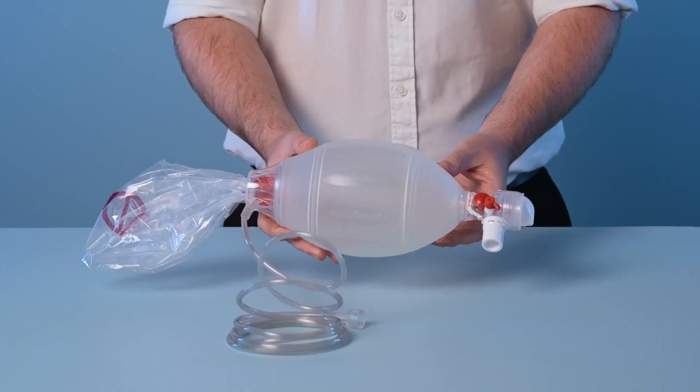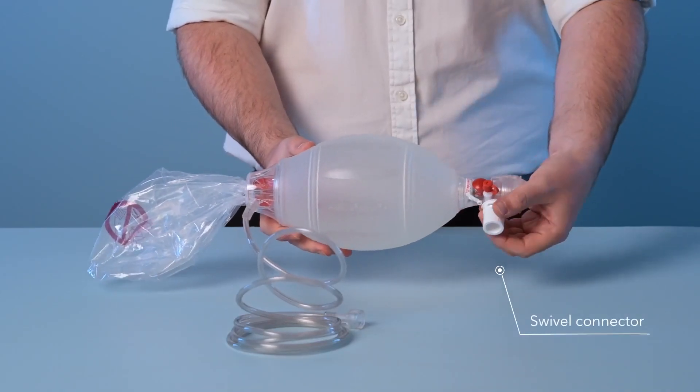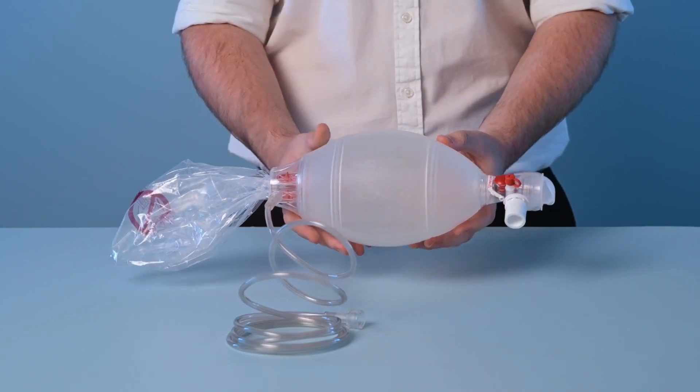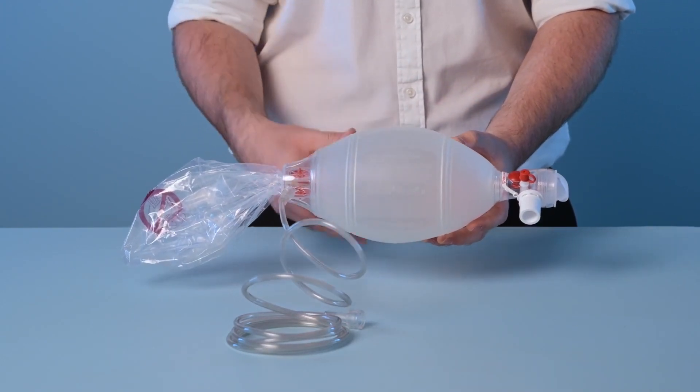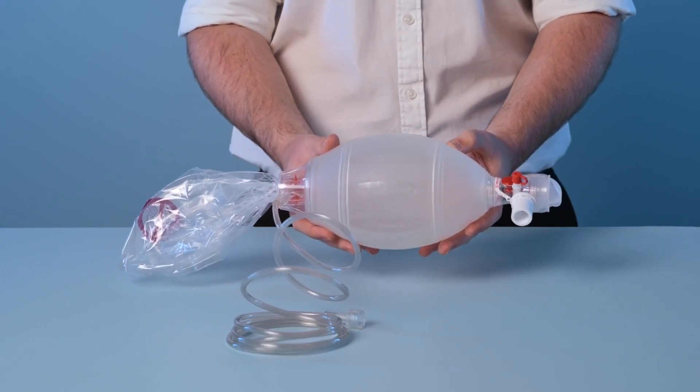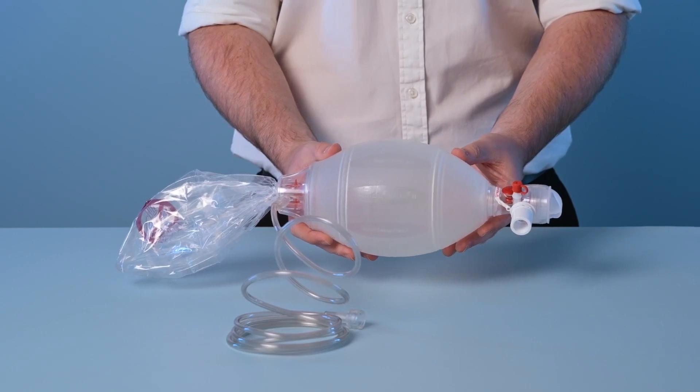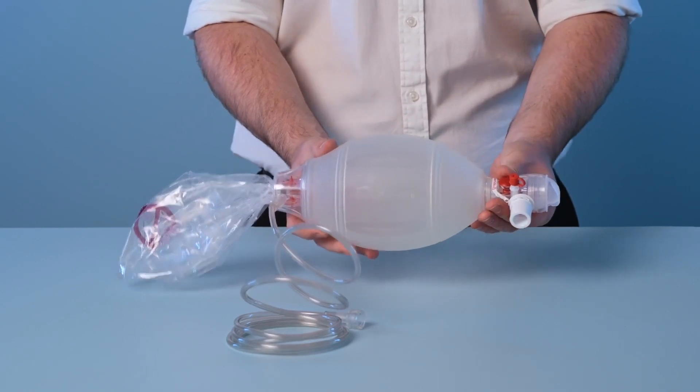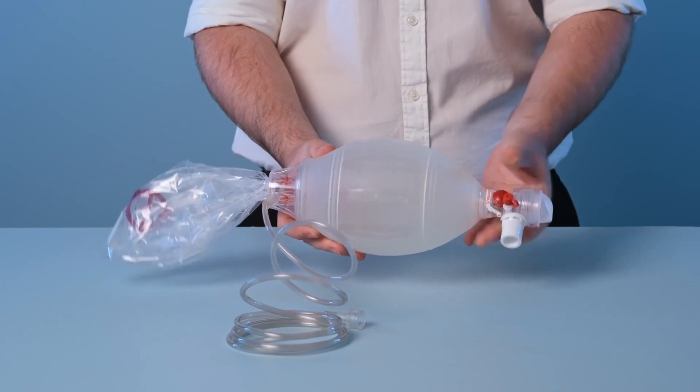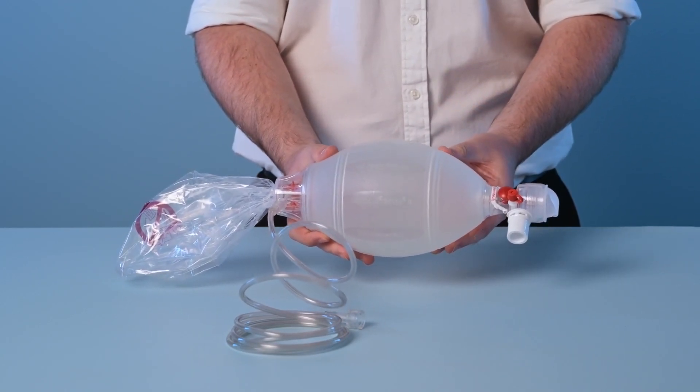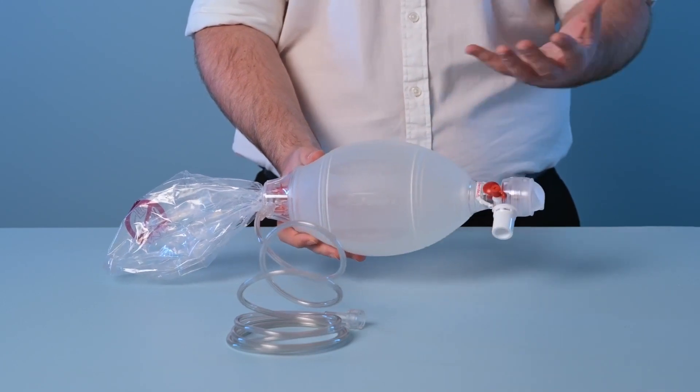The patient connector itself is a swivel connector which permits 360 degree rotation of the resuscitator and therefore allows for the user to optimize their positioning without interrupting ventilation of the patient. In addition to this there is also a swivel connector between the compression bag and the patient connector, and this also permits 360 degree rotation of the compression bag to assist with the user's hand positioning.